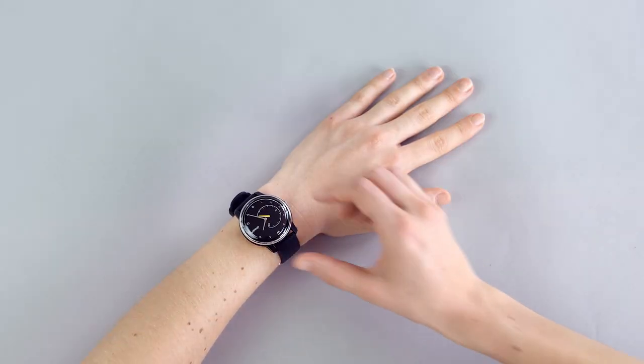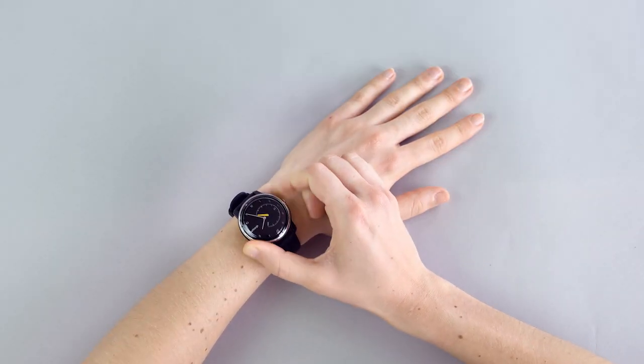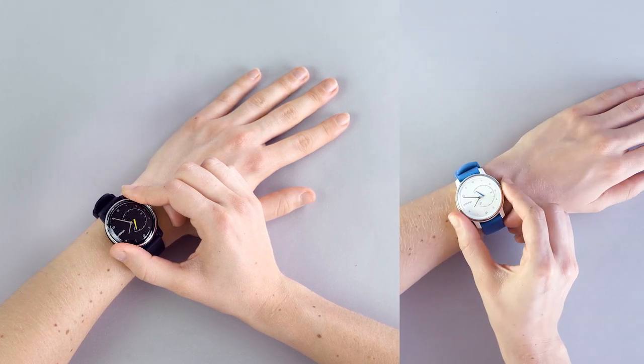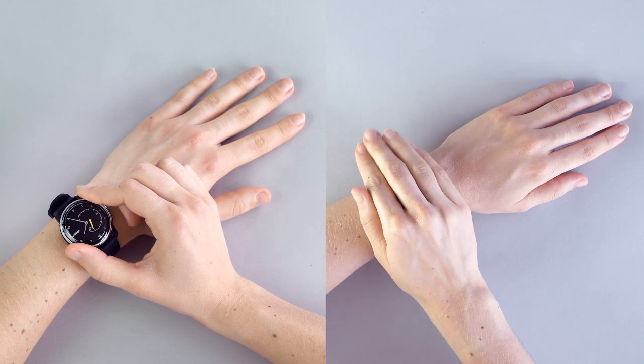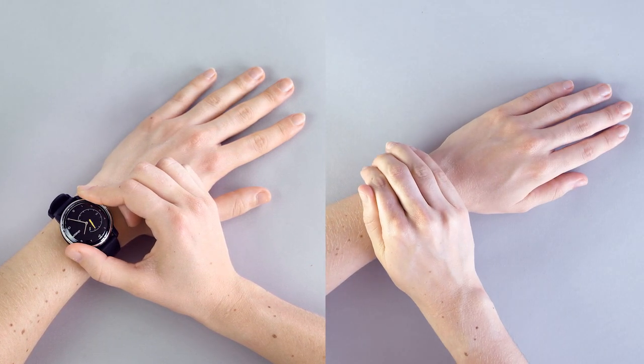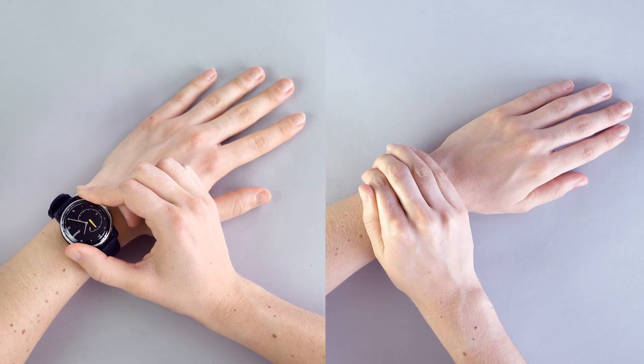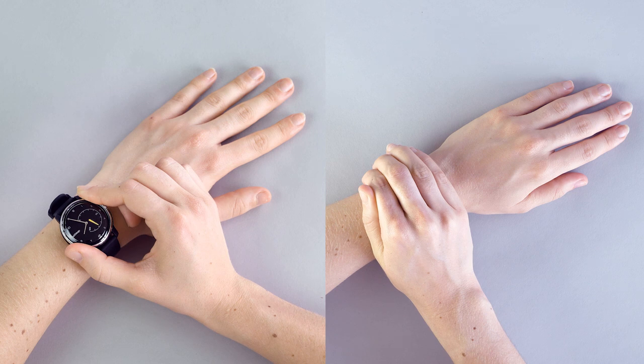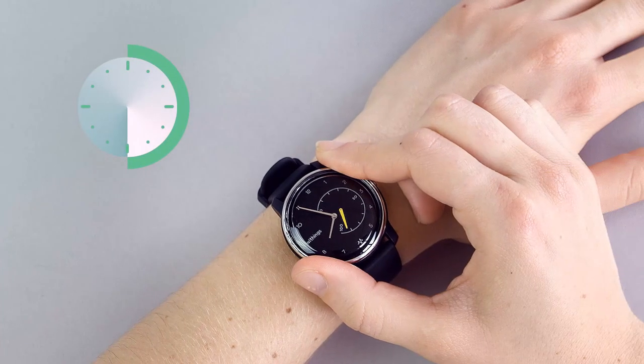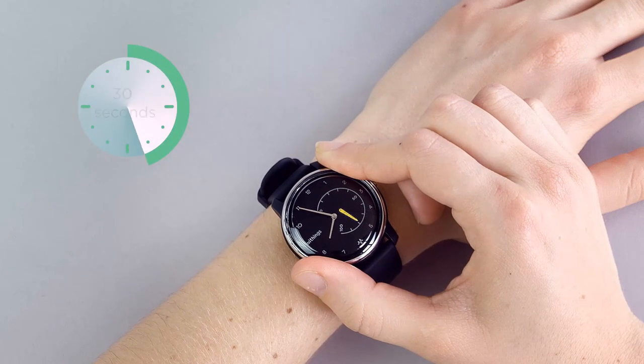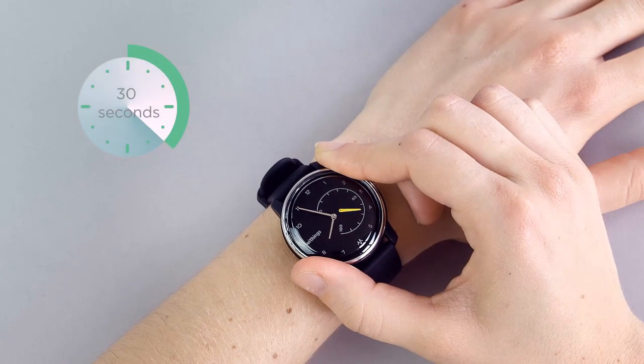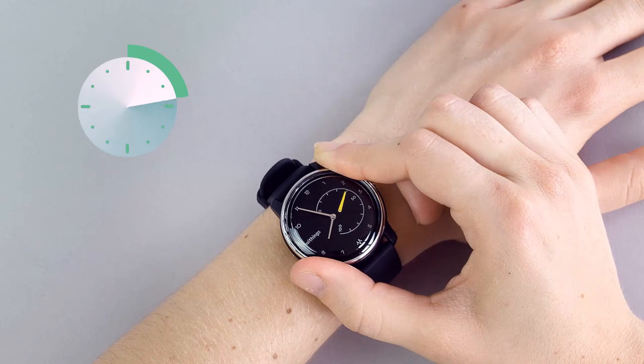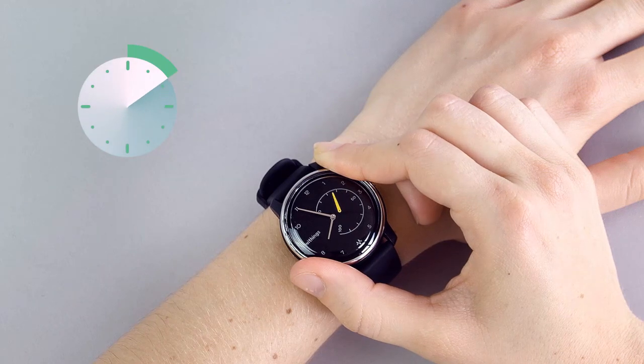Press the side button once and gently place your fingers on the bezel, the top ring. There are several ways to hold the ring that work, but make sure to maximize the contact. Stay in the correct position for 30 seconds. The sub-dial will move to show the progression of the measurement.